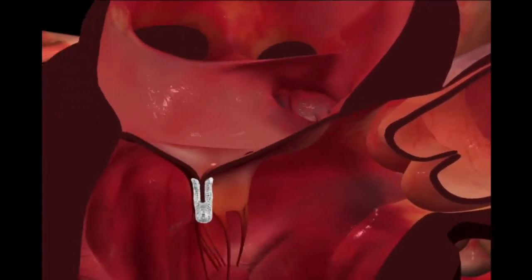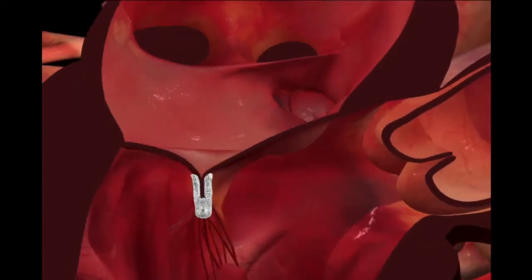The MitraClip device is made of metal and covered with a polyester fabric to promote healing.